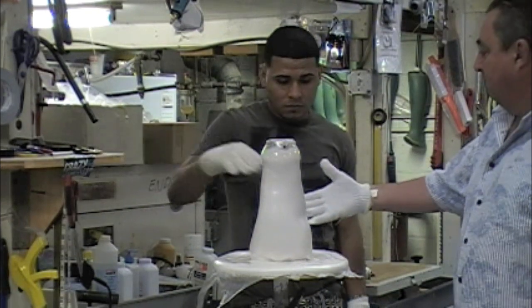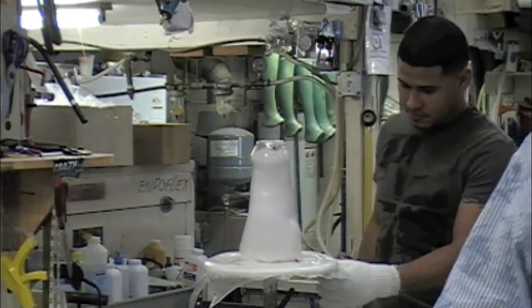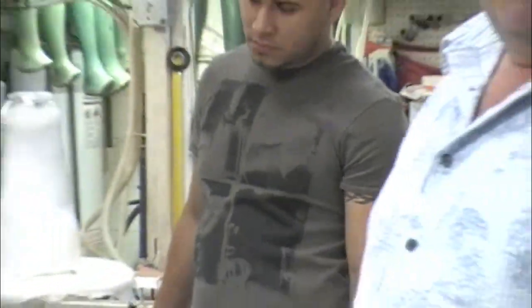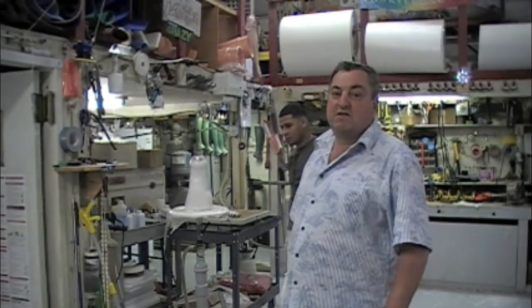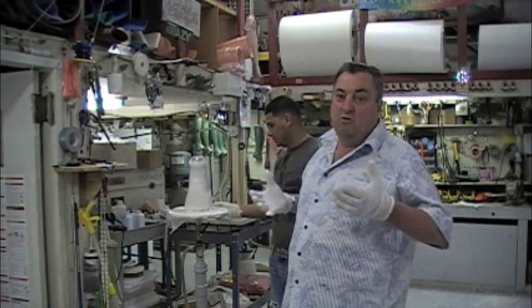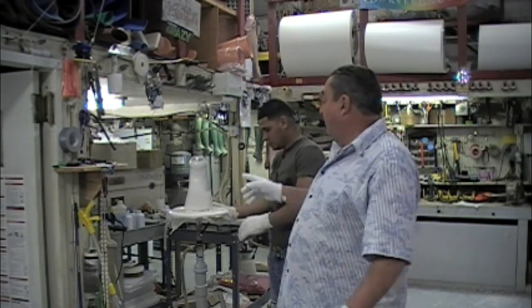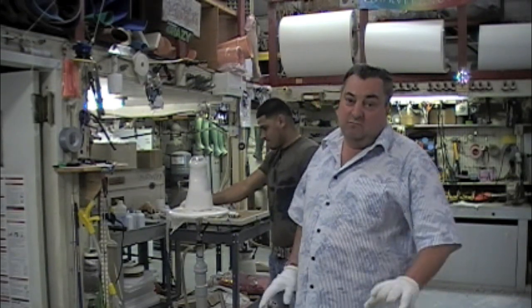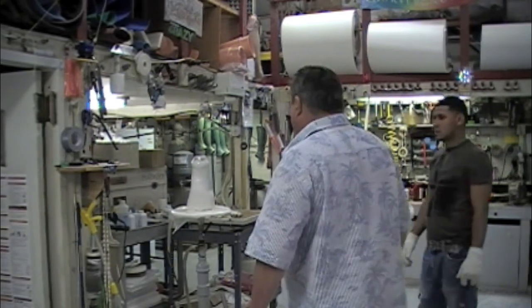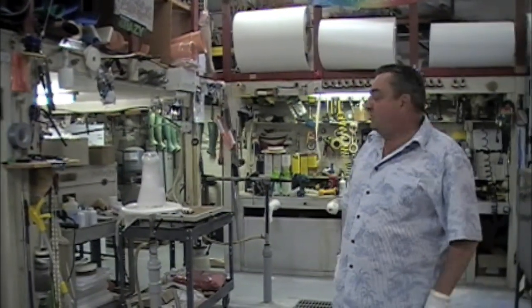Now how long will that have to cool? Good question. If I want to shrink the socket, I'll take it off today — because if we remove it today, it will reduce the socket by two or three plies, because the plastic as it cools and cures, shrinks. If I want to maintain the shape exactly as it is, we'll take it off tomorrow. And there you go: socket, plate, everything mounted all in one shot.